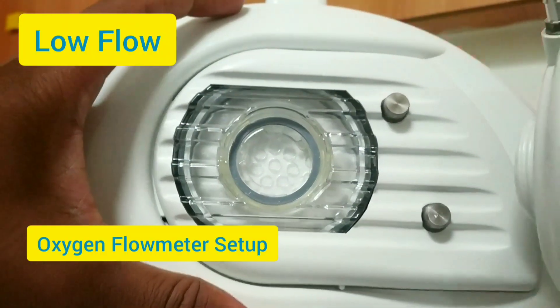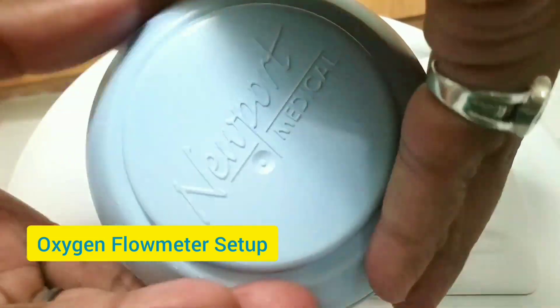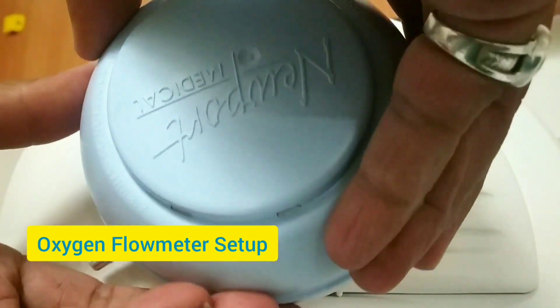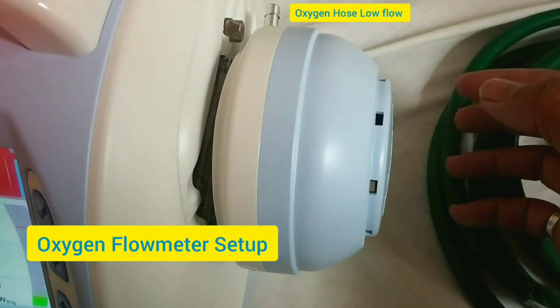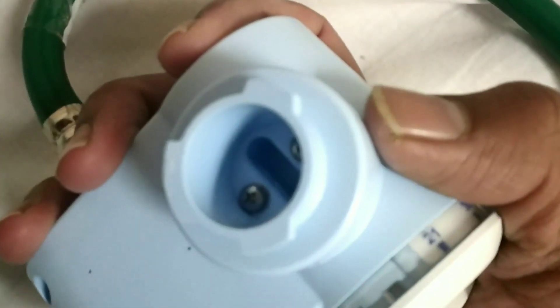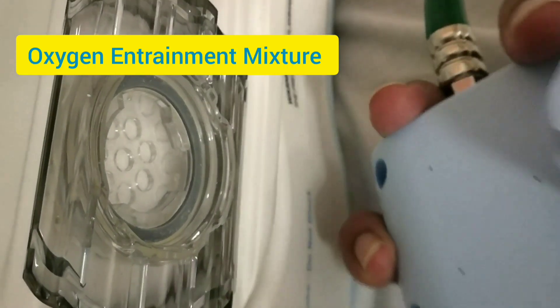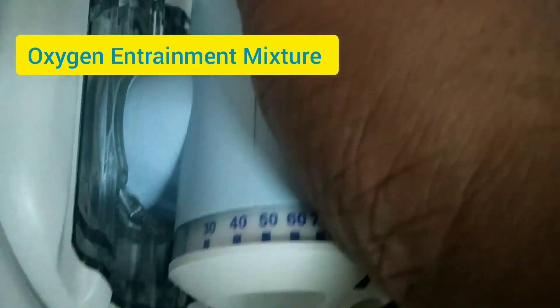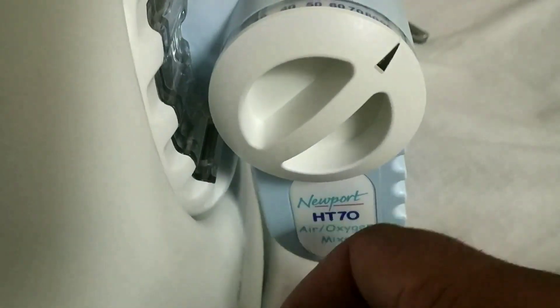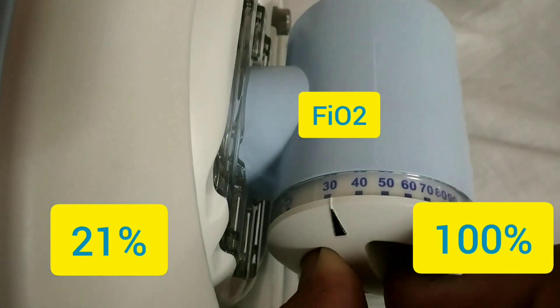Now we will attach the low-flow oxygen flowmeter setup. If we want to give non-humidified oxygen flow, we attach it using a screwing mechanism — the metal tube gets attached. For oxygen entrainment mixing, if you want to connect directly to the bed-head panel, you align the three-pin connector, match the socket, twist it, and it is attached. FiO2 from 21% to 100% can be set by simply moving the knob.